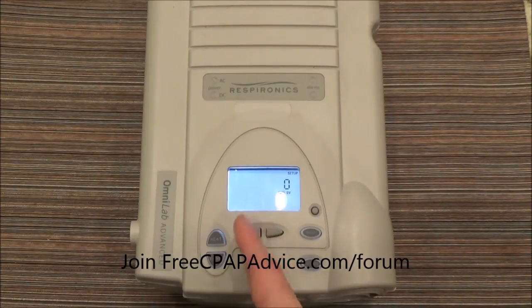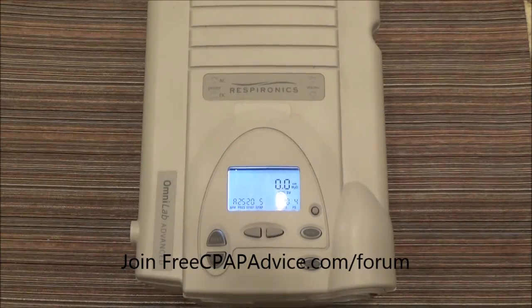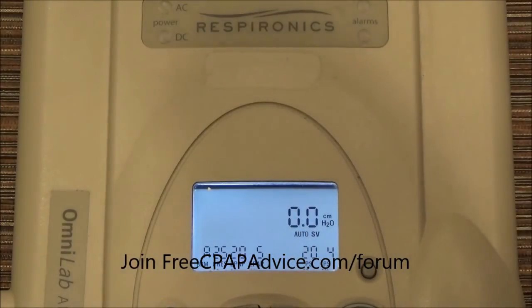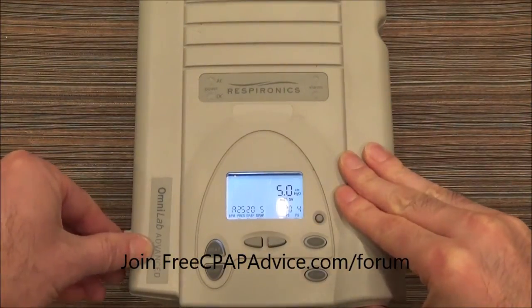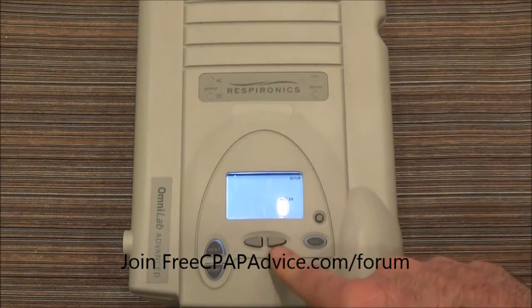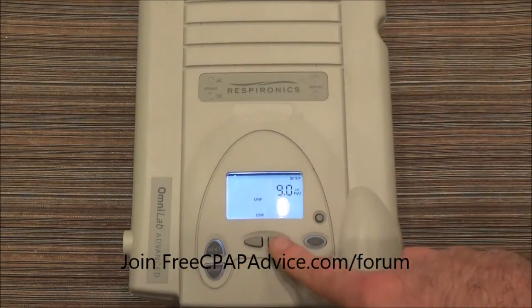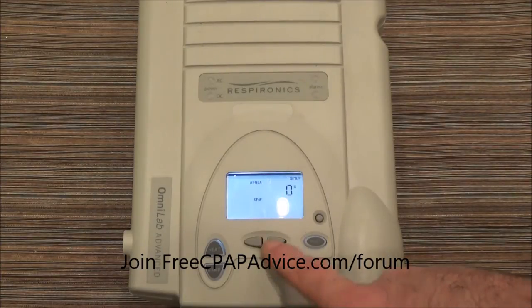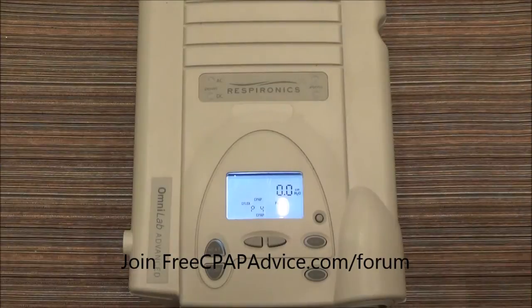It's kind of accounted for in it being an Auto SV. Once you toggle all the way through, you go ahead and turn it on and you can see down here that all the settings have stuck. All right, so let's pretend like your patient is saying they really just want straight CPAP. Turn it off, and again we enter these settings — push the right arrow and the silence button — and we're just going to get them right back to CPAP. They're having a hard time so they want to try it on like four or something. Toggle all the way through, turn it on again, and you see that the settings have stuck: CPAP at four.